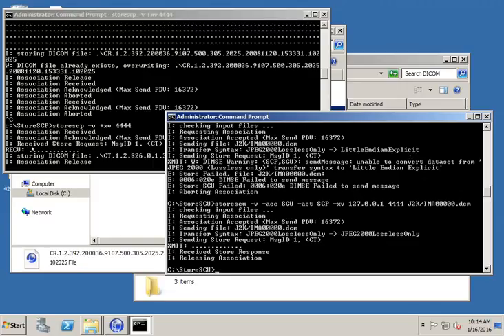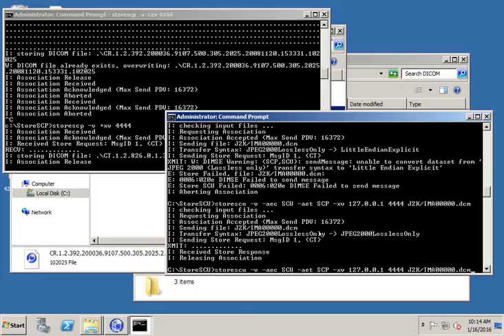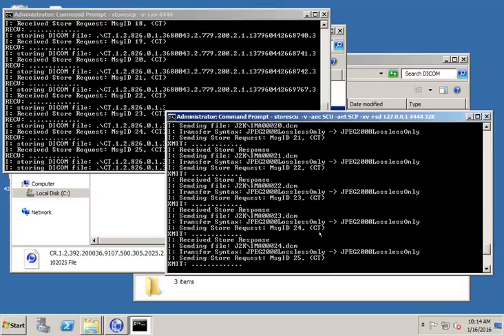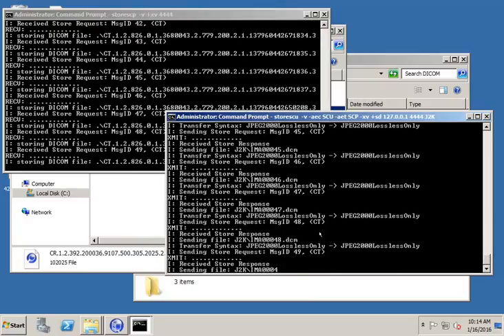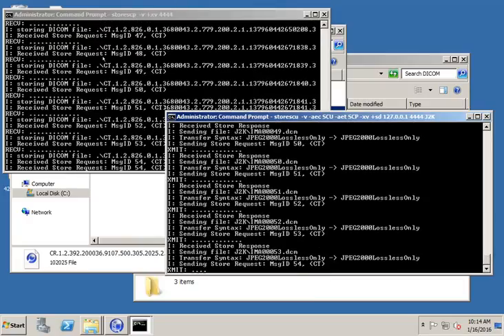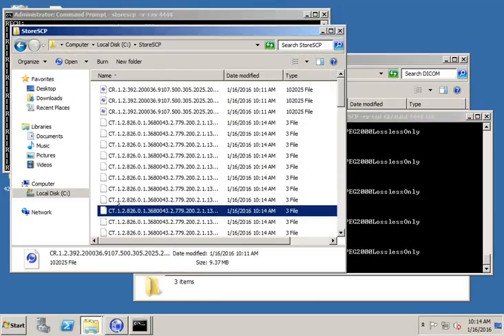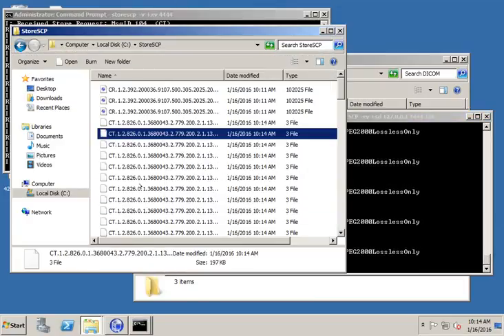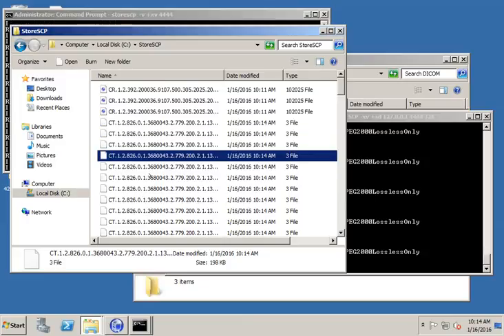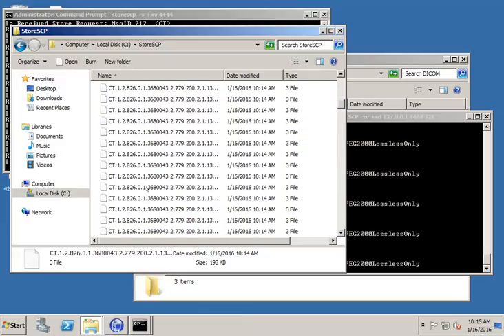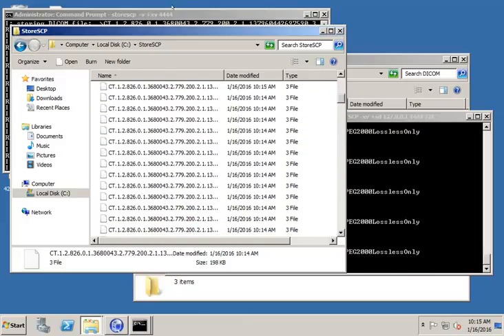So there's only a few little dots on here, and it went very fast, because it's a really small file. But we can go ahead and send all the files. If you recall, the way we do that is I'm going to remove the file name, so we just have the folder name. And then I'm going to add another option. We're going to put plus sd, which is scan directories. I'm going to hit enter. And notice now we've got lots of activity. And if I go over here, I can start seeing all my files. So all the files now are showing up in storeSCP.